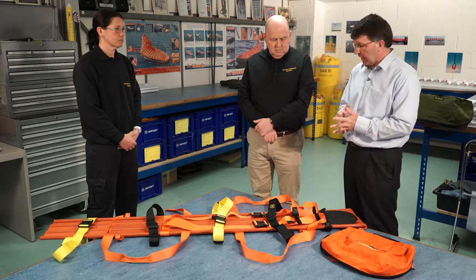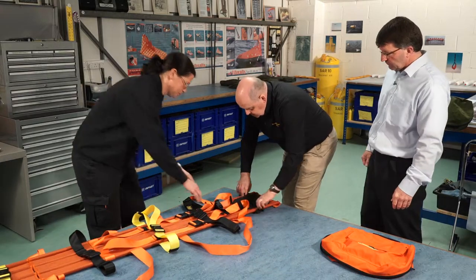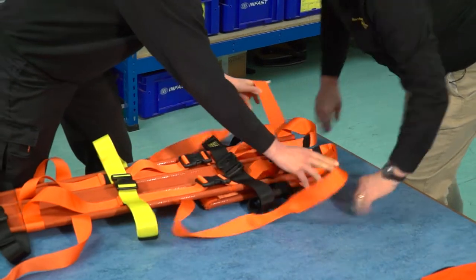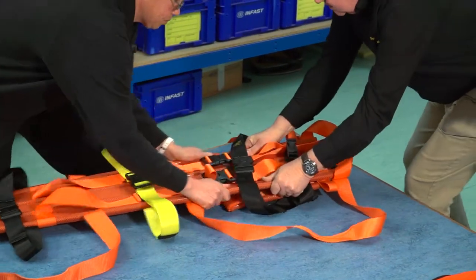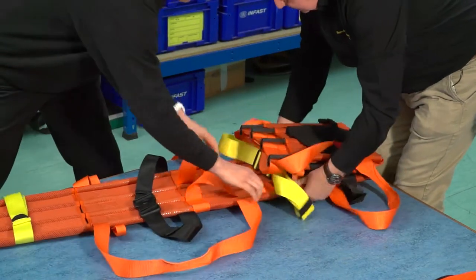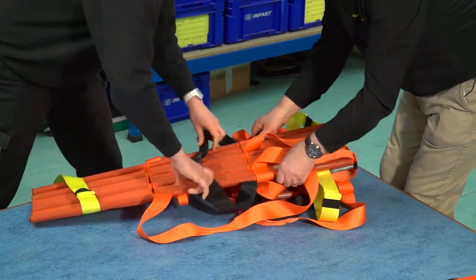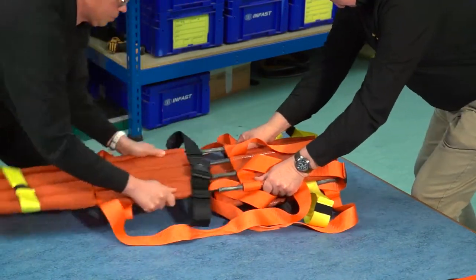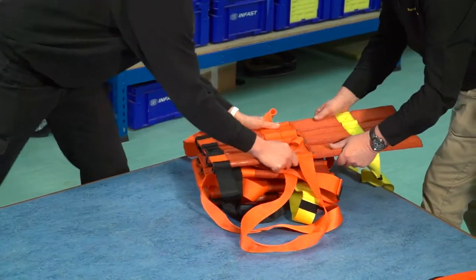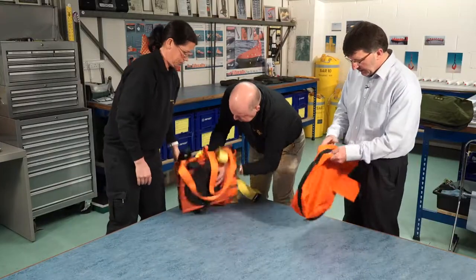So while you're pulling that out, we get to see the elasticated joins on the carbon fiber poles and the straps sort of naturally fold into the stretcher itself. That's very quick to fold it up, and now Becky's going to get it into the bag that it's carried in.